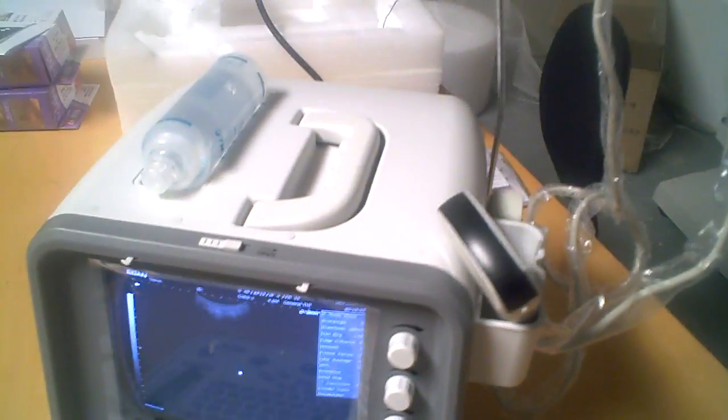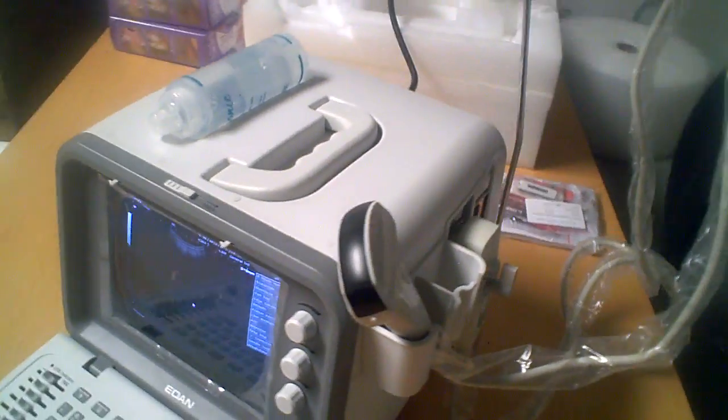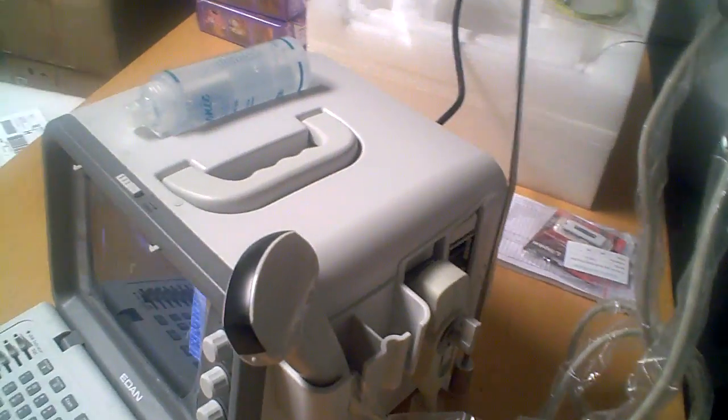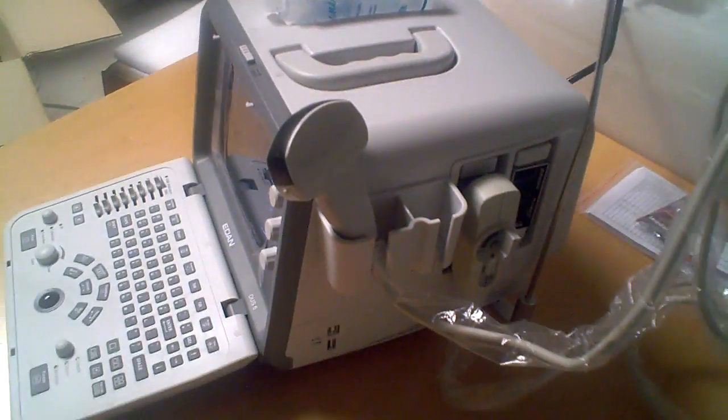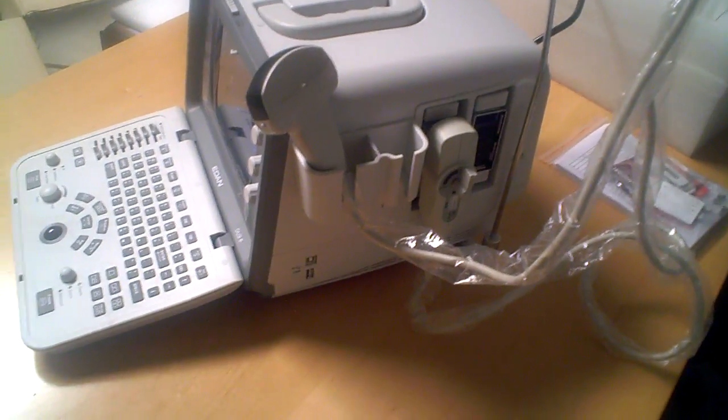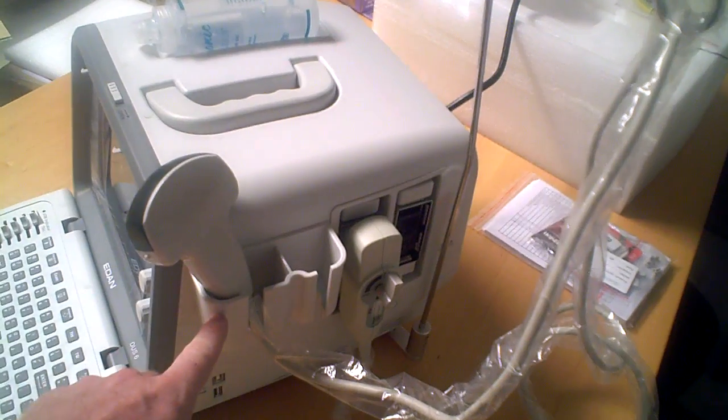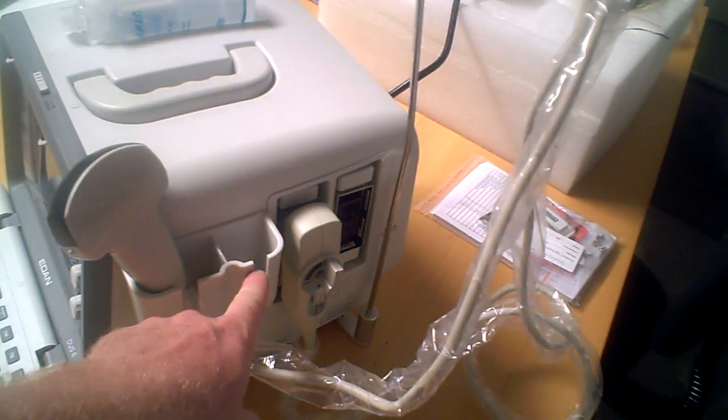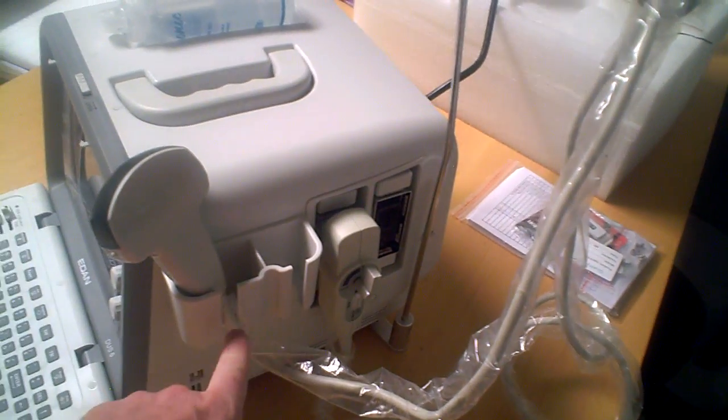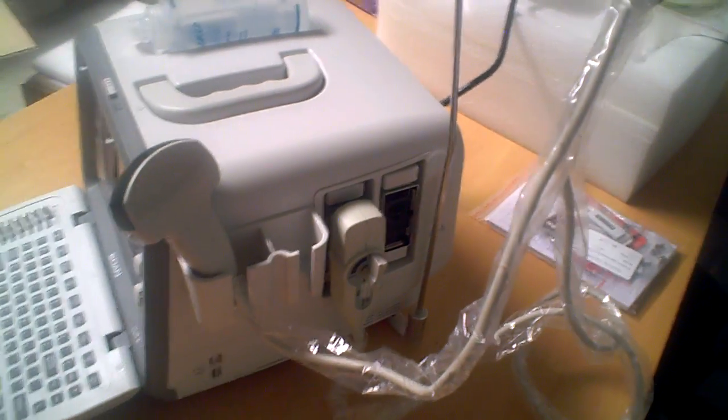And as we go around to the right, you can see that it does have a pretty compact setup. You have two locations where you can hold transducers.